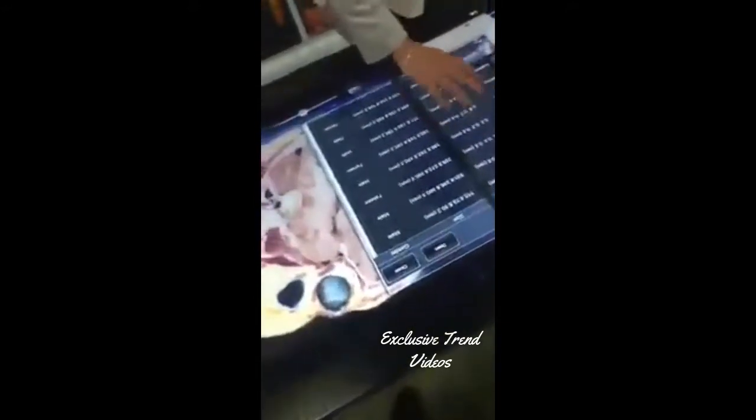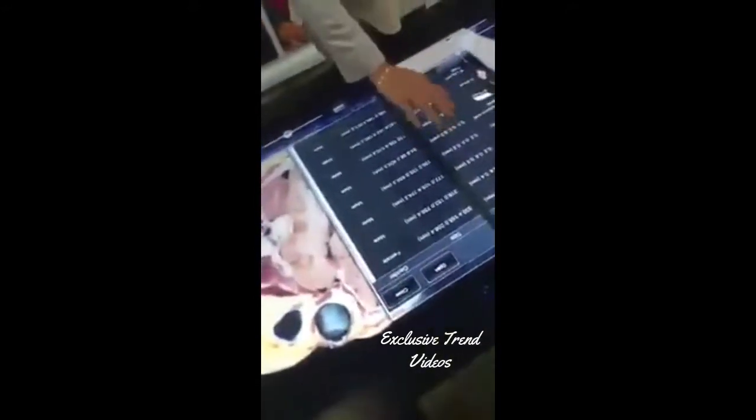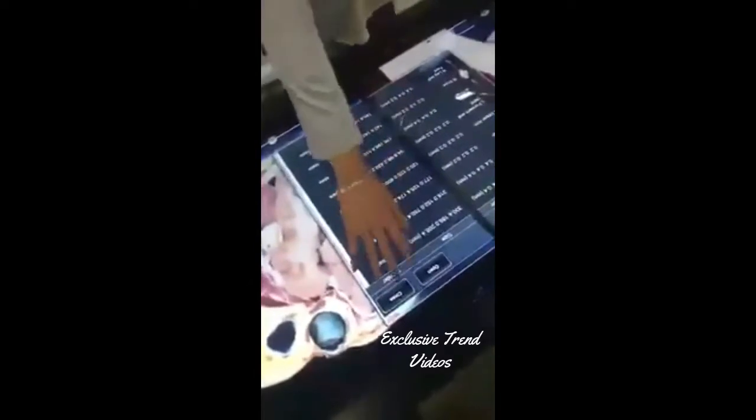You're not just limited to the head and neck. You also have areas like the brain, large areas like the thorax and abdomen, all the way down to the leg and foot.